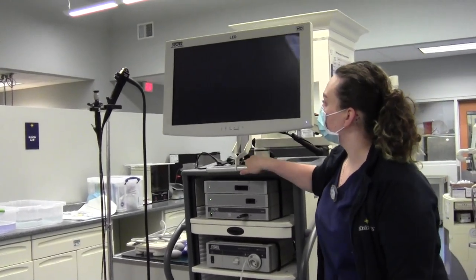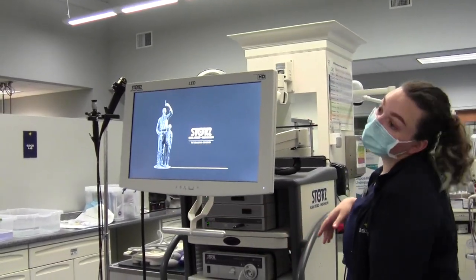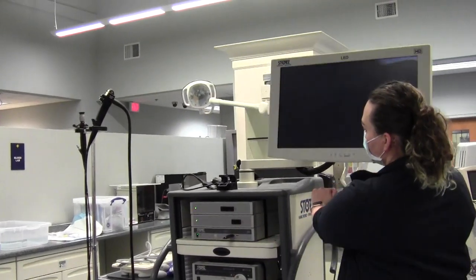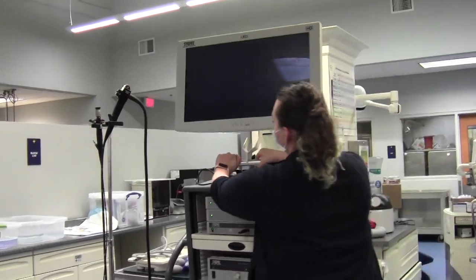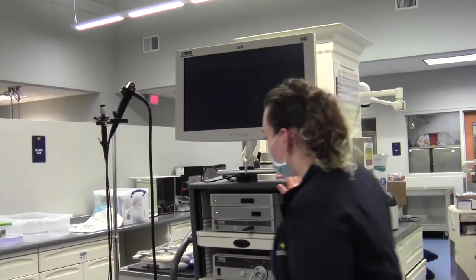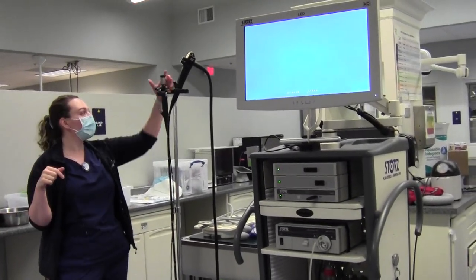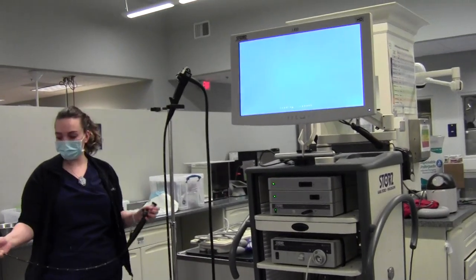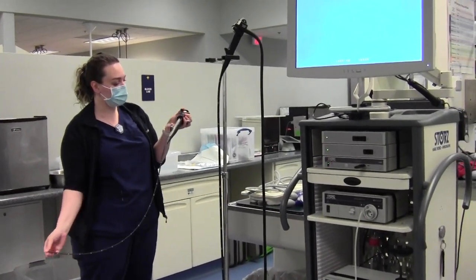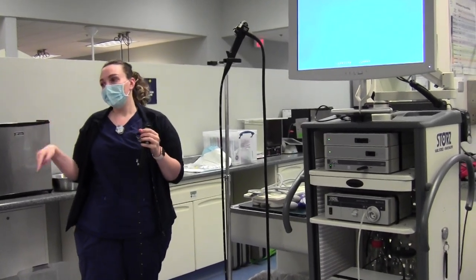What's really nice is that this monitor actually also moves so that you're not cranking your head like whatever the doctor is looking at. So it is movable. There are, for this purpose, three scopes that we commonly use. The first one is this small short one called the bronchoscope — this is for going down to the trachea, into the lungs.